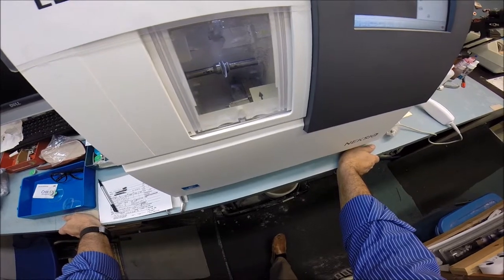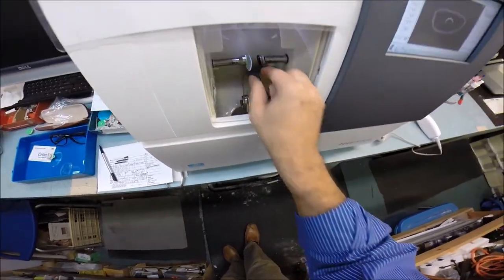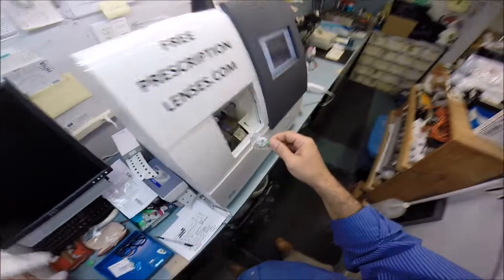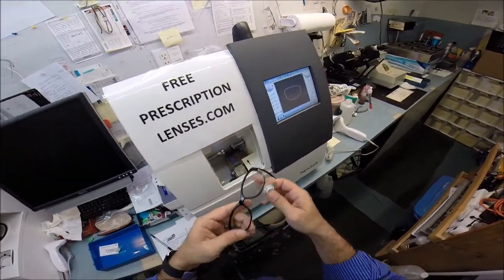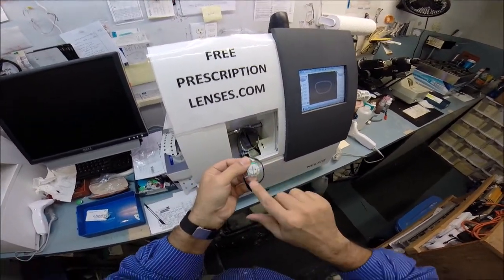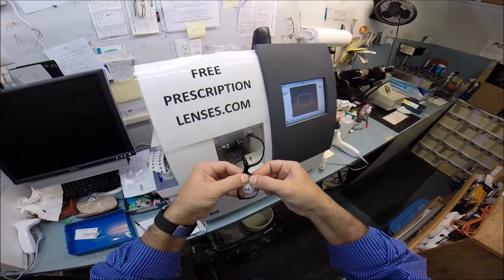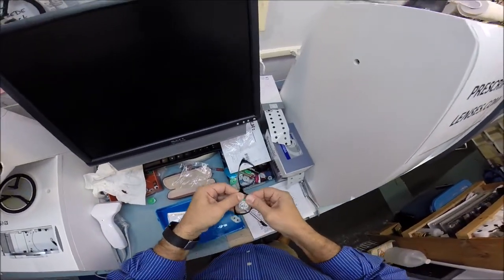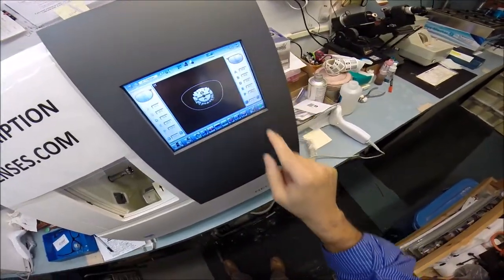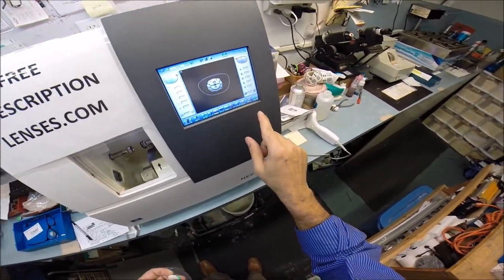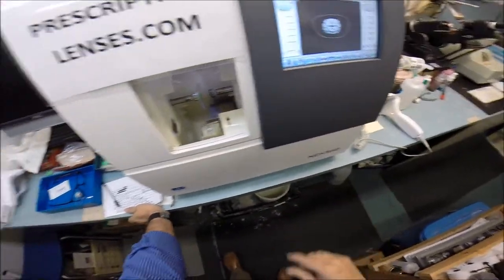Now the lens is done. In just a moment the door will open. I will take the lens out. I will hit this button which will cause the chuck to open. I'm just drying your lens off so it's not slippery and I'm going to apply it into your frame. I'm going to start by tucking in at the outside corner first, closest to me, using my thumbs. I press down at the nose, now it snaps in. So let's go ahead and do the same thing.